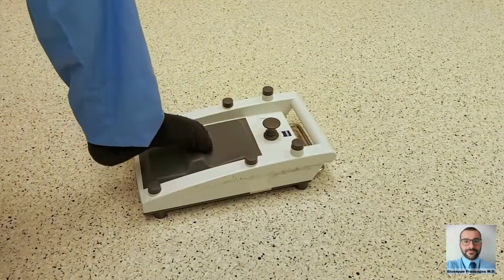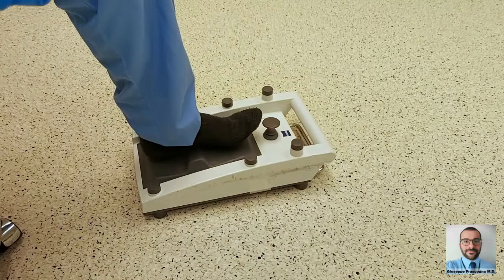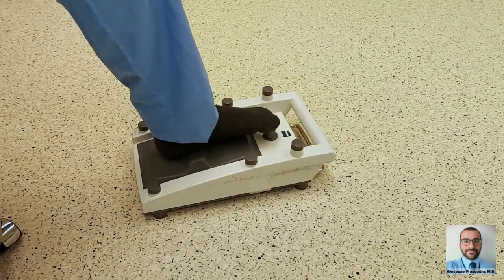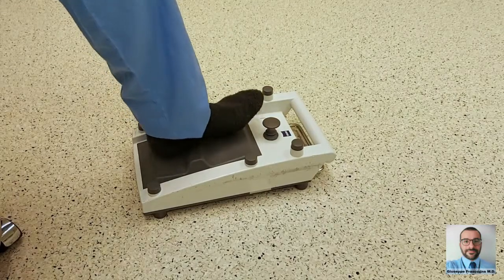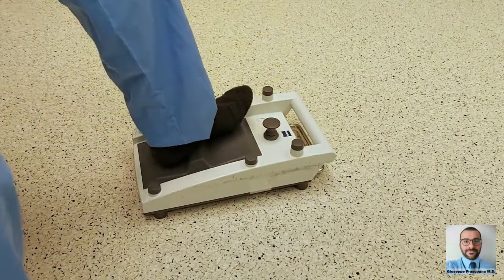The microscope pedal always has a central rest bar, two pairs of heel and metatarsal buttons to adjust focus and magnification, and an XY toes joystick. On the edges, there is a set of programmable buttons to activate and deactivate each type of light and, on demand, balance them in order to obtain the desired proportion.